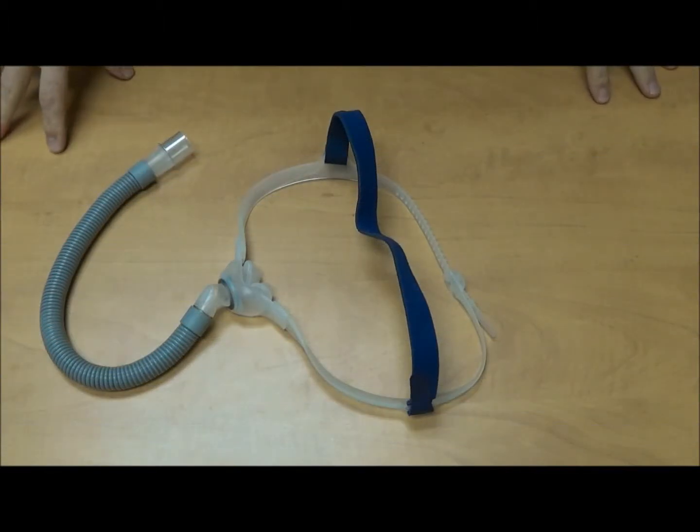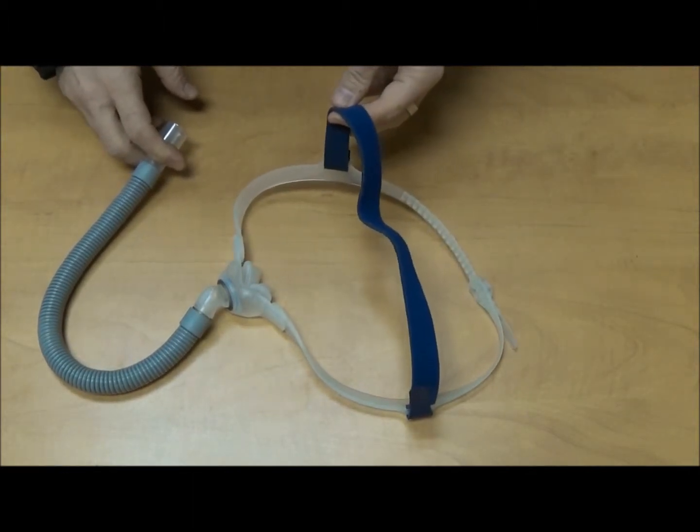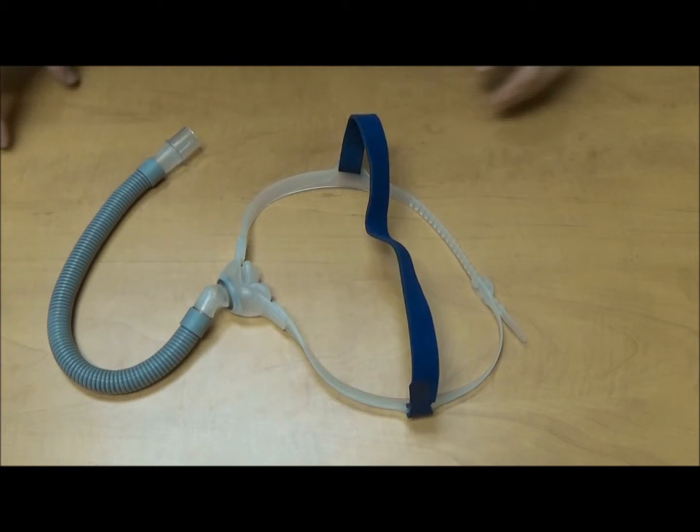Hi everyone, CPAP Clinic here today. We're going to show you how this simple little mask, the ResMed Swift FX, changes into different masks.